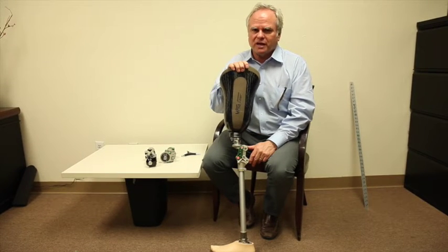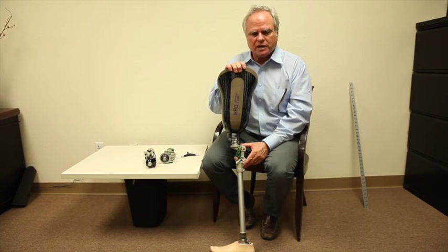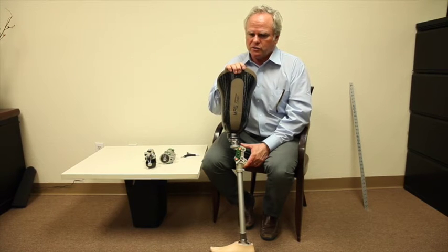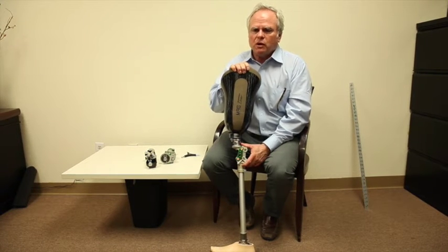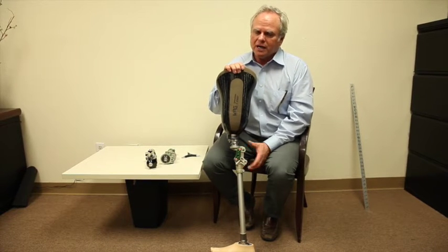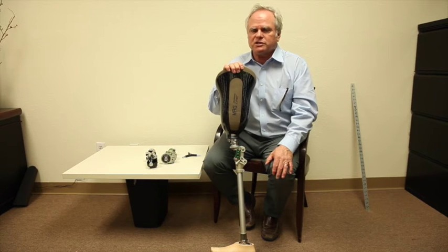This is a geometric device. Geometry change will never wear out. That's the problem with what we call the safety knee—it's great when we deliver it but six months later the braking mechanism is worn out and it's no longer safe.